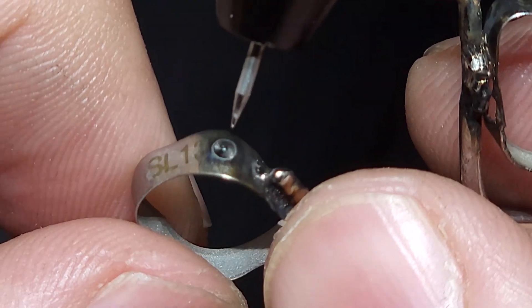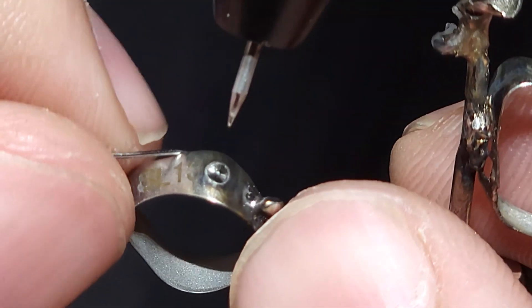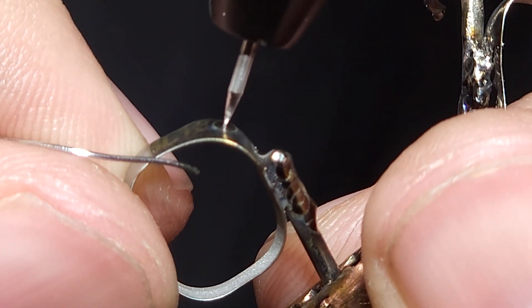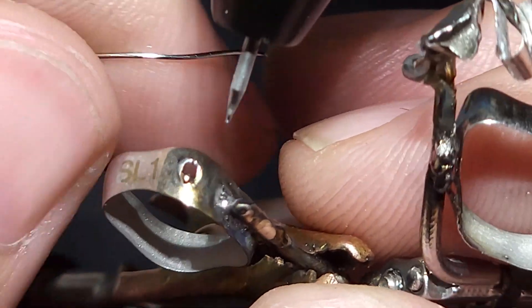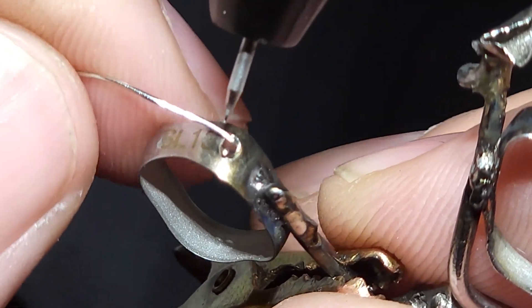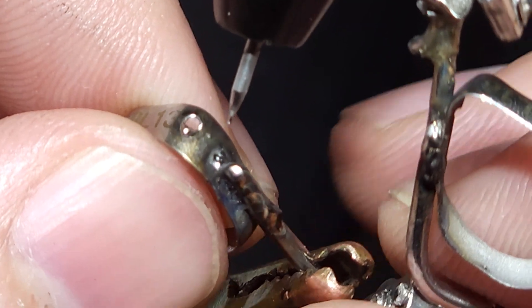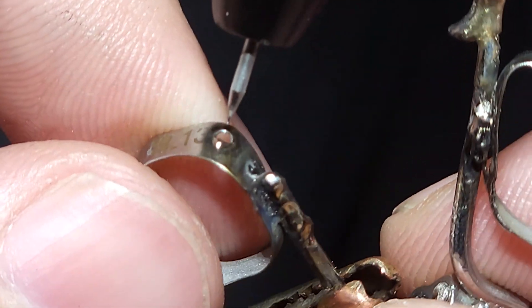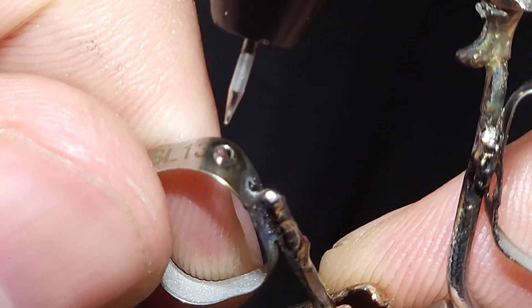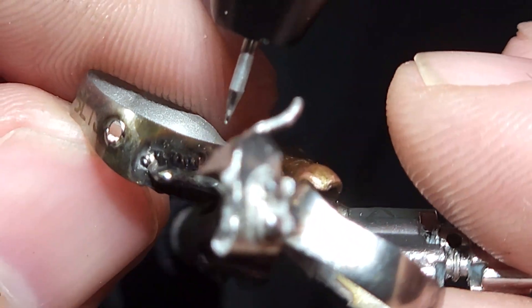Let's say we go like this — I wasn't able to bust a hole through that. Maybe with a slightly sharper electrode or 20 watt seconds this could happen. When this happens with this technology, we're kind of stuck — we can't really repair that and have it be worth it. It would be better to just take off this molar band and start over on that section. We can use a diamond disc to smooth out that wire. If we needed to repair the hole, we could do it with a laser welder. We have other videos showcasing dental and ortho applications using a laser.